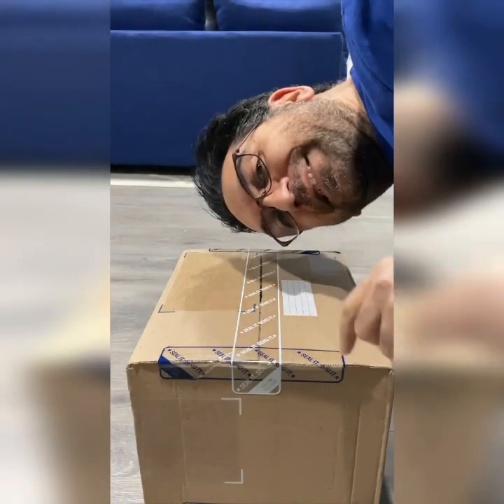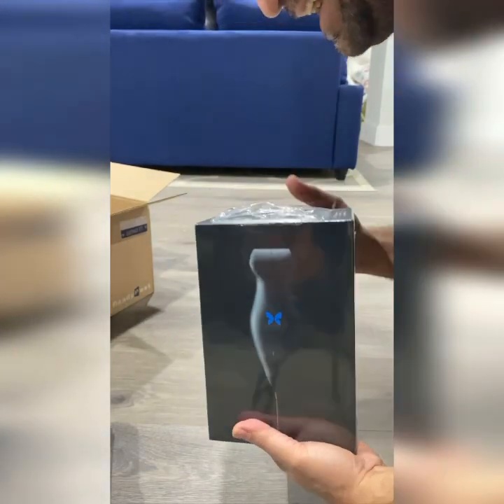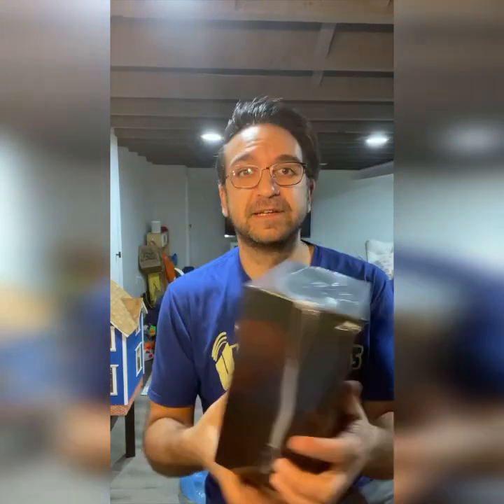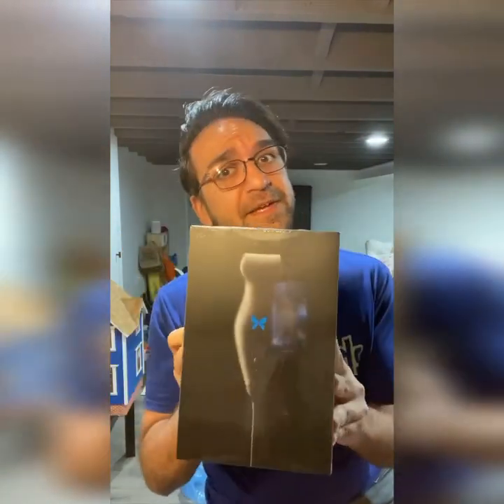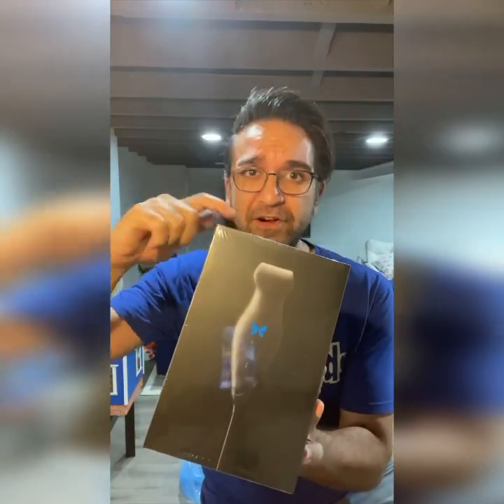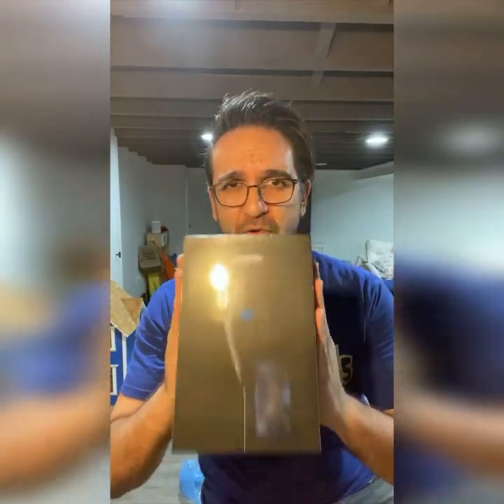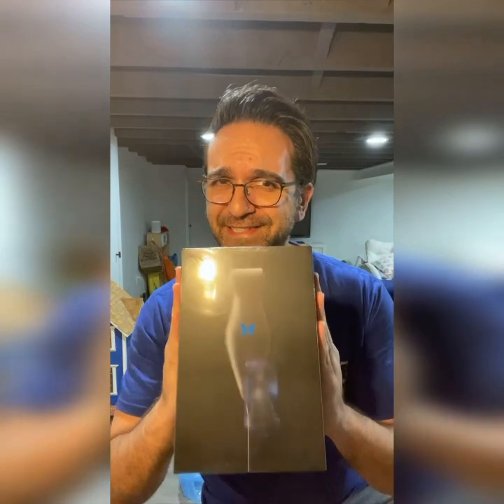What's in this box? It's pretty amazing. What's inside here is definitely an upgrade to what you already know as being a pretty impressive portable ultrasound. I just can't wait to open this up and tell you a little bit more — let's go!